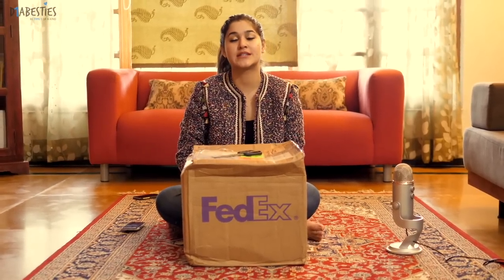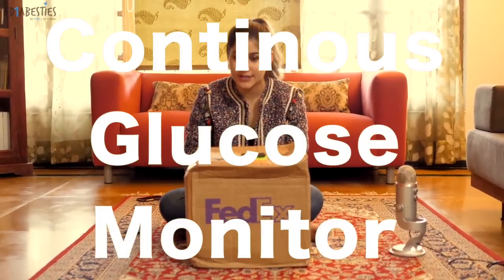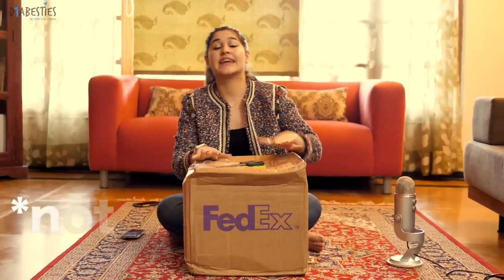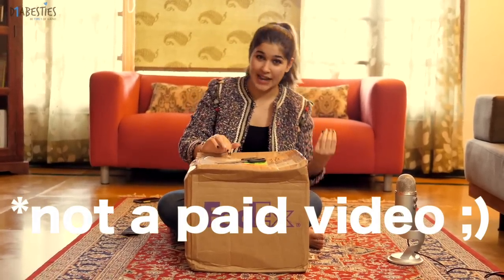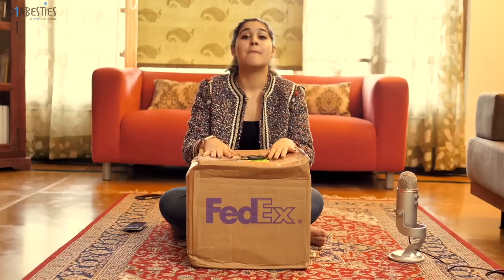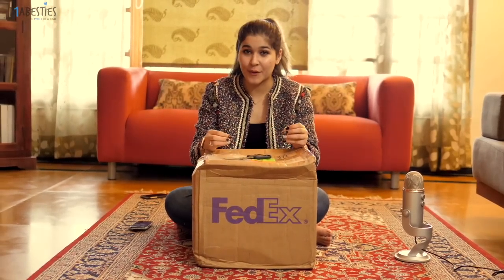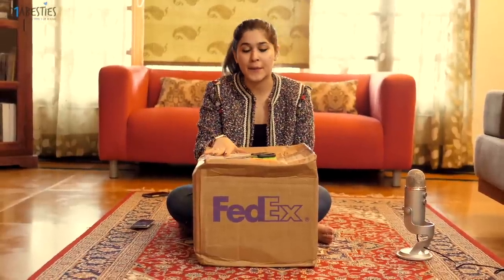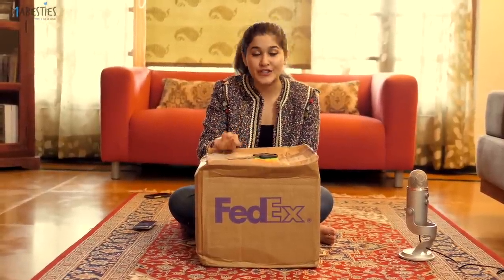For all those of you who are not aware, the Dexcom G6 is a continuous glucose monitor, and why the G6 is so incredible is that it's connected to your smartphone, it's connected to your Apple Watch, it alerts you when your sugar is going down, alerts you when your sugar is going up. It is like an artificial pancreas — I mean it doesn't deliver insulin, but it's so incredible. And I am really looking forward to it, and you are coming in with me for the first time when we open this baby up, and I'm going to actually try it on for the first time.